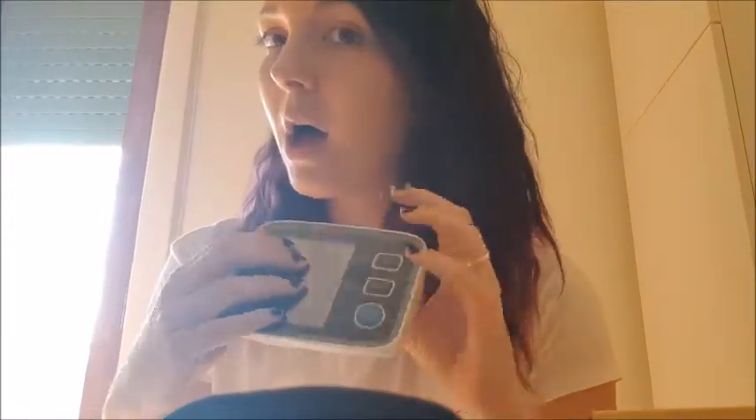The user manual comes in English, Dutch, French, Spanish, and Italian, so I can read it in at least two languages. I am very, very pleased. I'm going to have to test them out, but I wouldn't really know how to compare them since I've never used either kind before. But I'm really, really happy with this purchase.